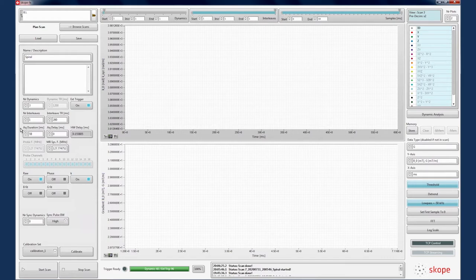First, we will try an axial spiral, with gradient activity primarily in the two transverse planes. We capture the full acquisition duration starting from the slice select gradient pre-winder.